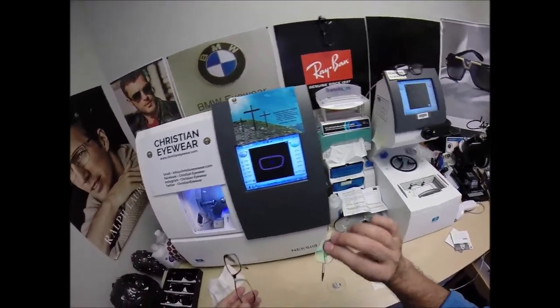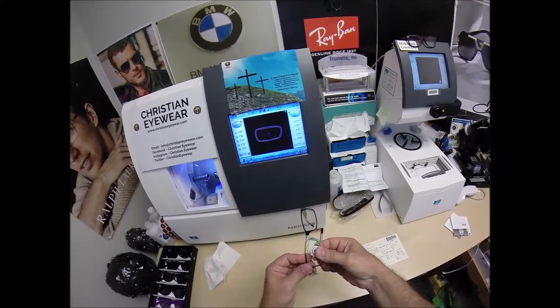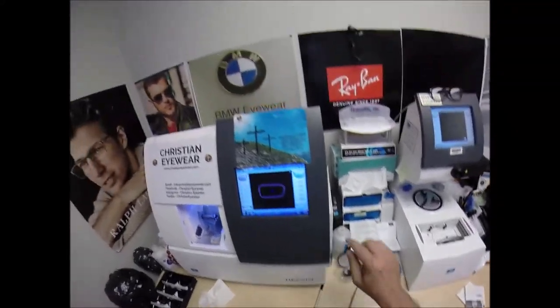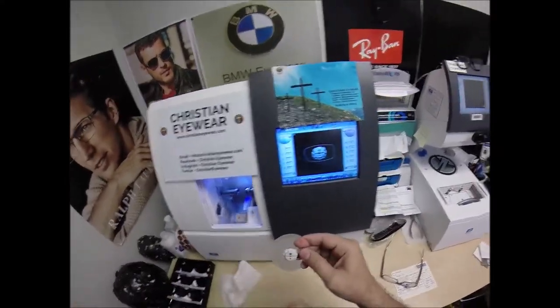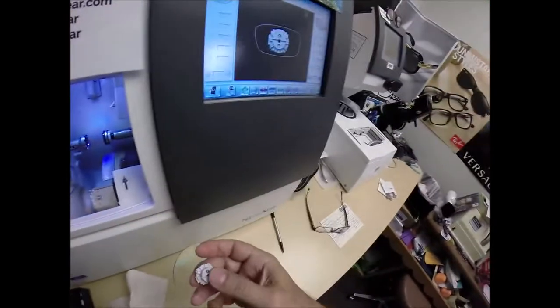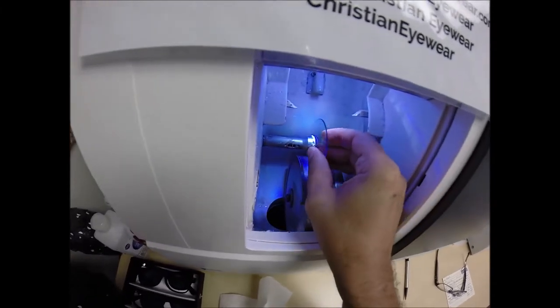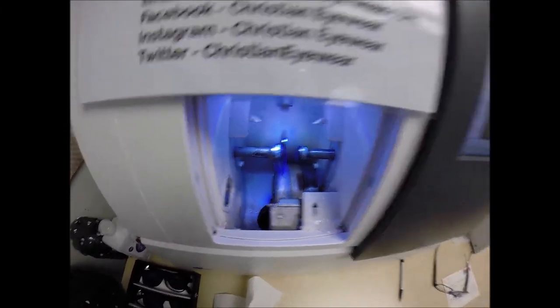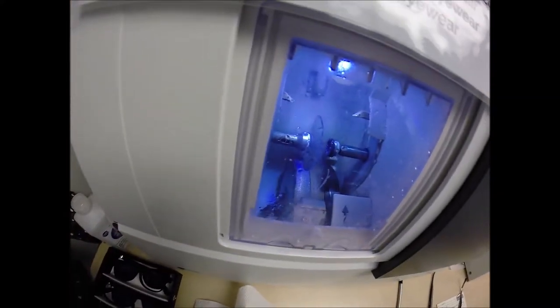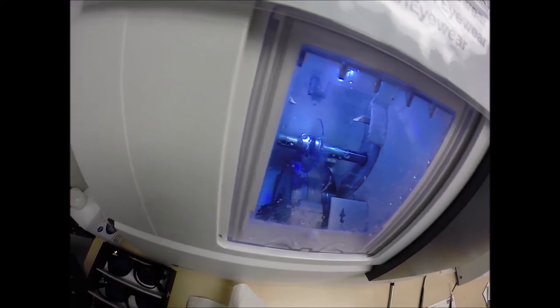I want to make sure all the optical sawdust is off the edge of the lens. I have the side I'm working on closest to me. I'm going to tuck it in at the outside corners — when I push down with my thumbs, it snaps right in. Let's flip that over to L. Place the magnet into the Chuck — the Charles — the Chucky Baby — or today I'm calling it the Robert. Hit the green start button. Some days I push a lot of buttons for other people; some days, like today, I just can't push a button.